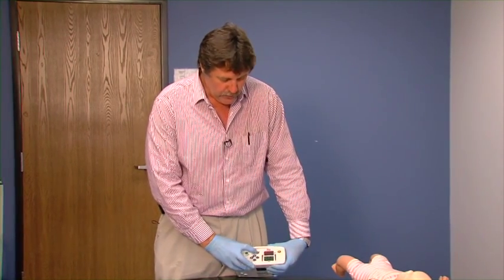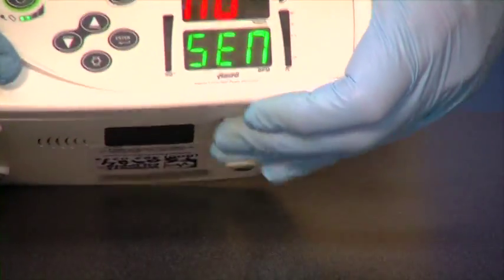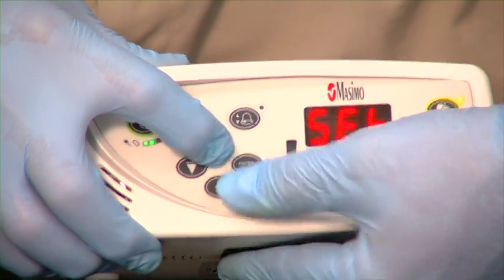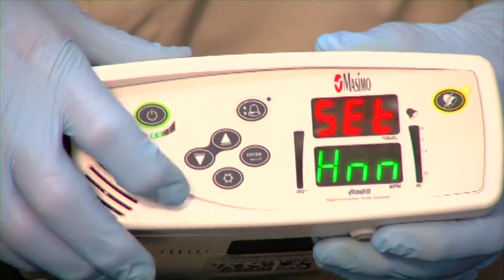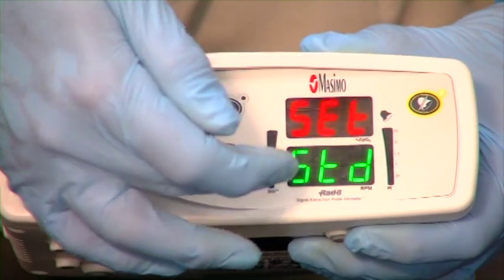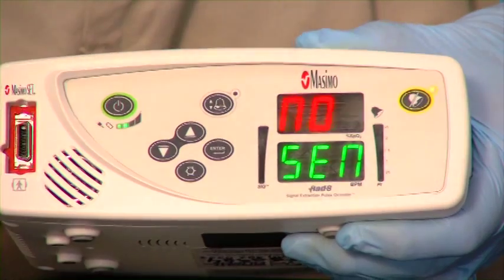When I press our selector button, it's going to give us that alarm, and that's because the machine is locked. In order to unlock the machine, we press the enter and up arrow simultaneously until it reads SET in the upper window. Right now it reads HNN because HNN is locked. We use our up or down arrows to scroll through SLP, or sleep mode, which we don't use in this industry, or STD, which is standard mode — the mode that we want. We select that by pressing the enter button. Now we're in standard mode.